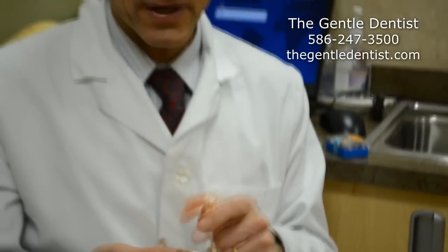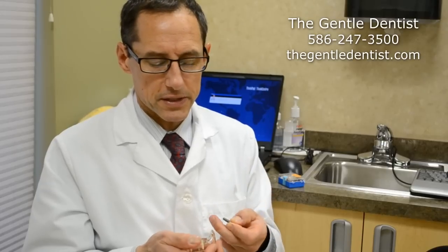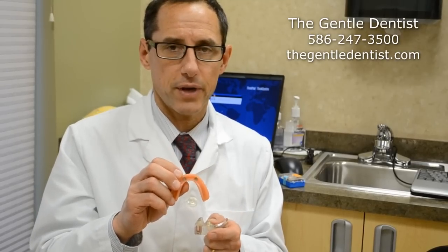In cases where there are no natural teeth available and there's adequate bone, I will usually suggest doing what's called a full implant. The larger an implant is, the stronger and more durable it's going to be. With these types of implants, we can place attachments — screw them right into the implant — and we have the ability to use a number of different attachments that have different holding strengths.